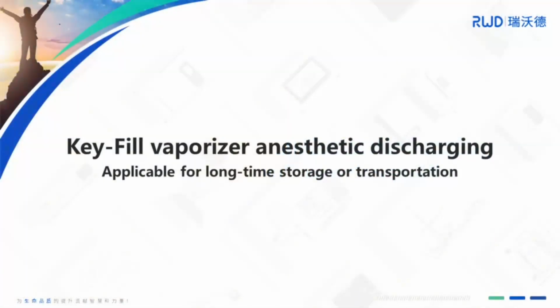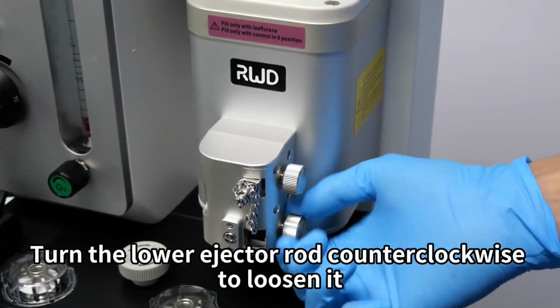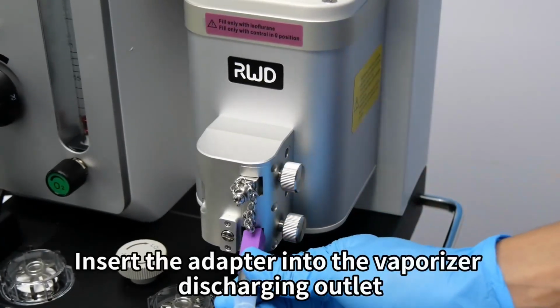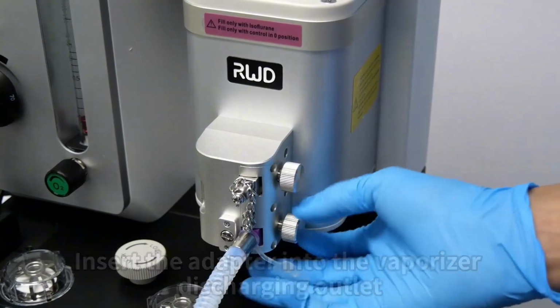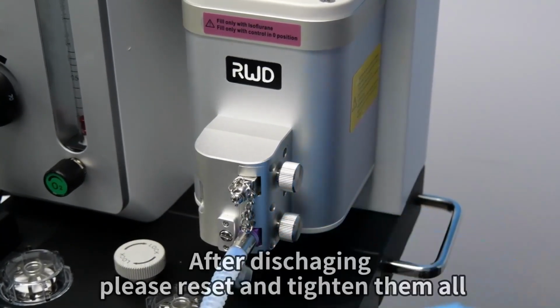Please do the anesthetic discharging in a good air circulation. Turn the lower ejector rod counterclockwise to loosen it. Insert the adapter into the vaporizer discharging outlet. Turn the lower ejector rod clockwise to tighten it for discharging. After discharging, please reset and tighten them all.